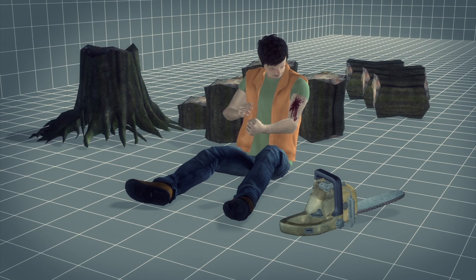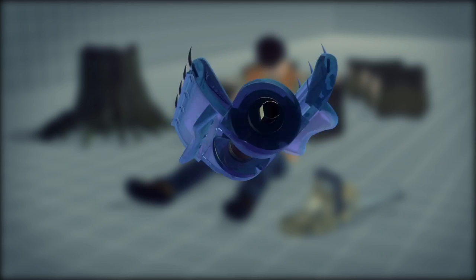The 5cm long IT clamp is a wide-mouthed clamp with suture needles. Its design was inspired by the simple hair clip.